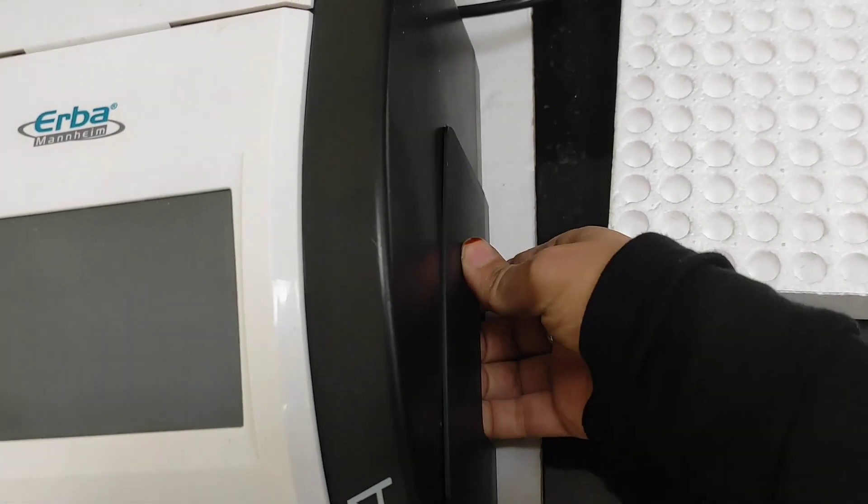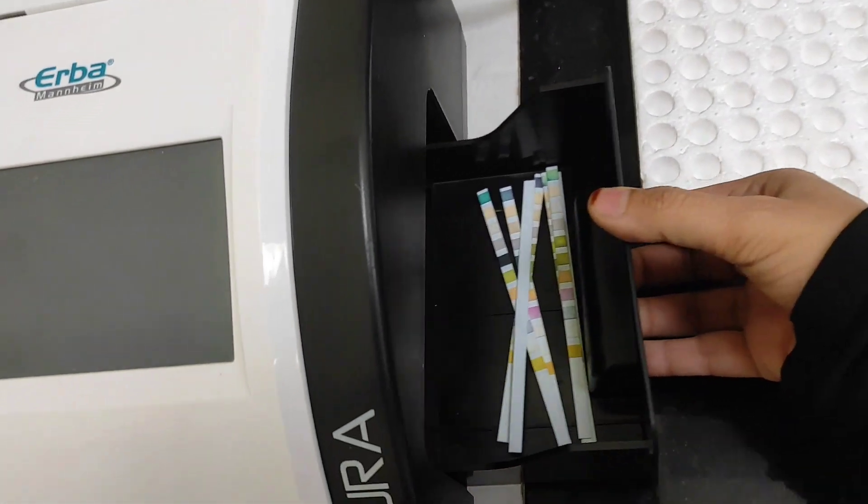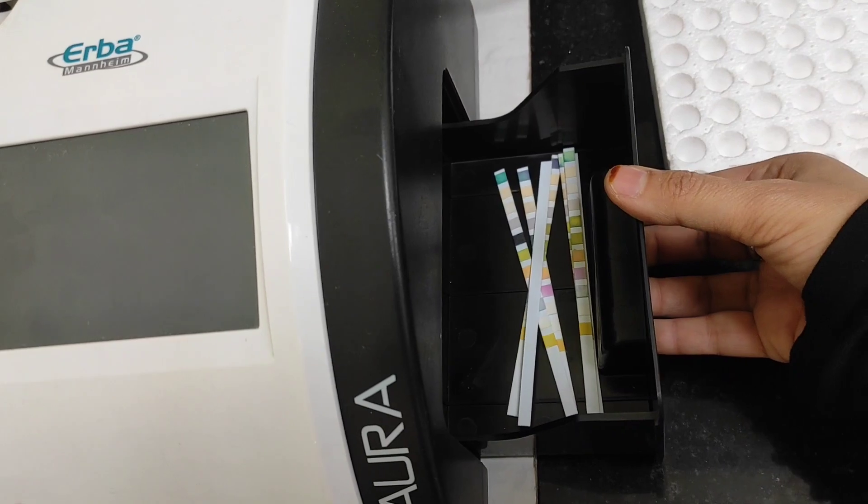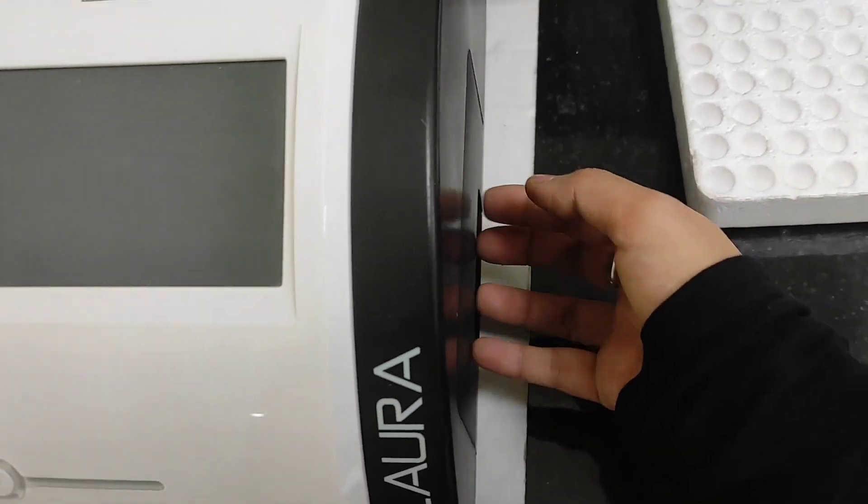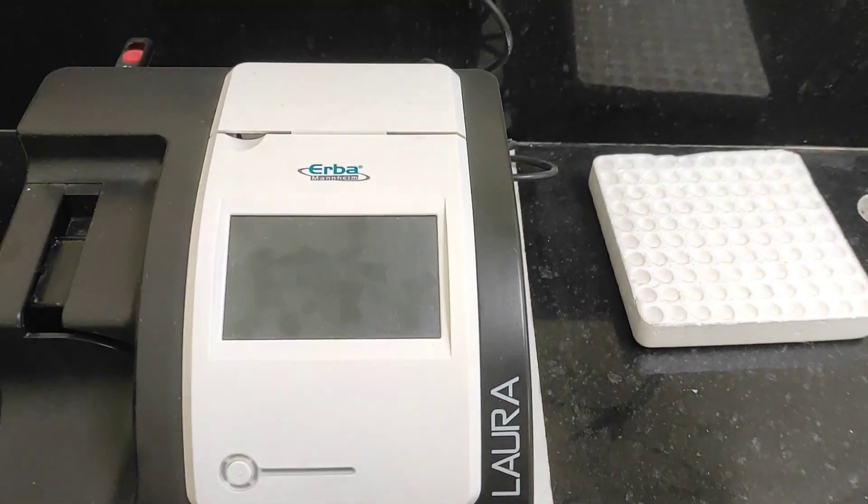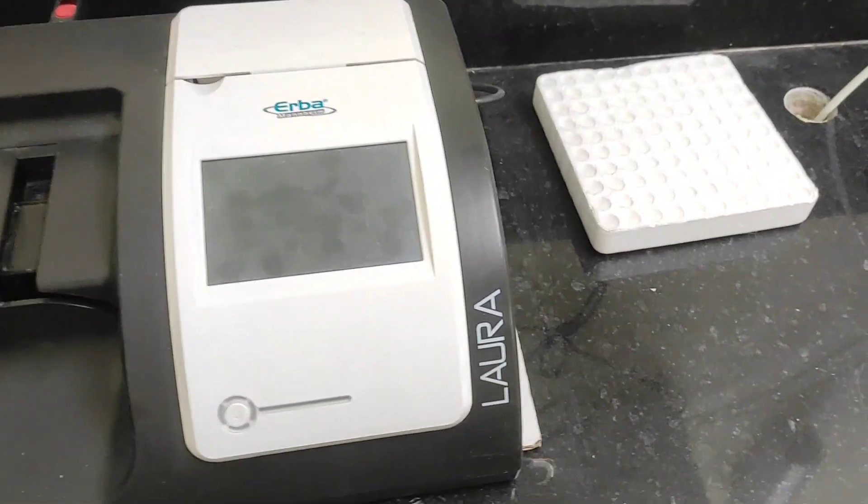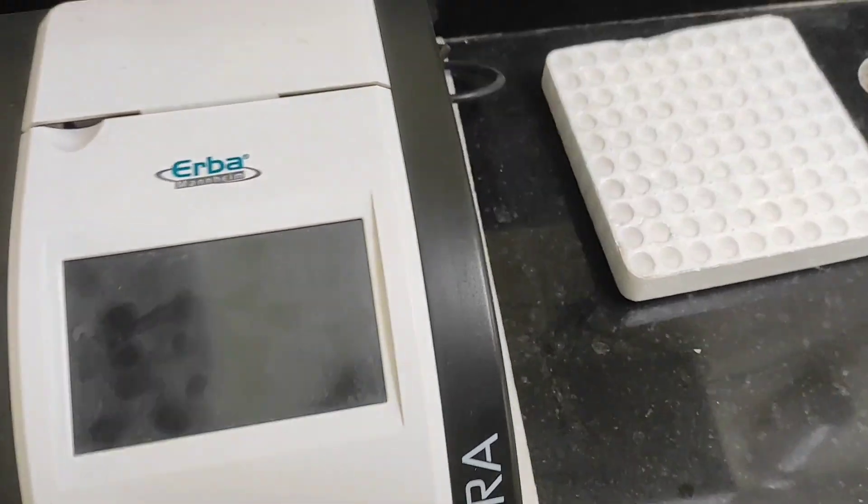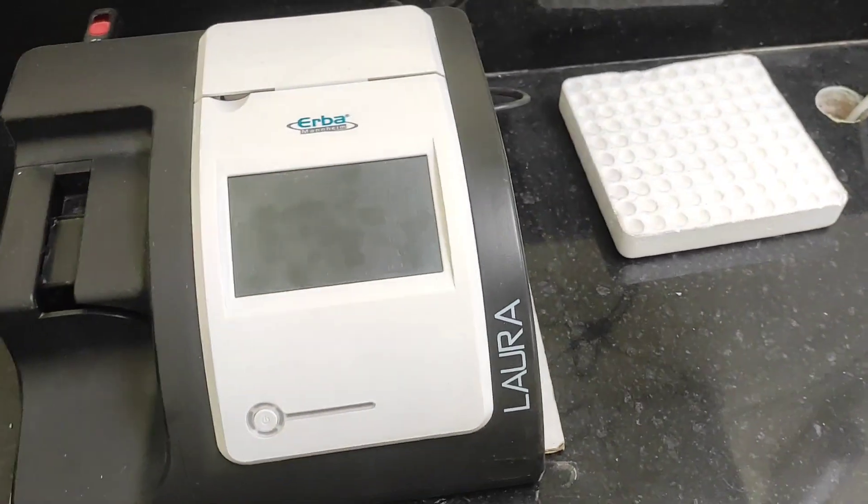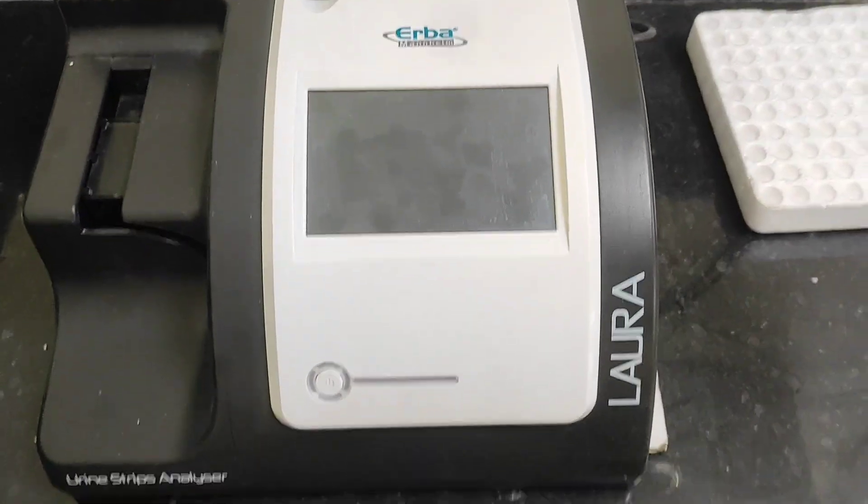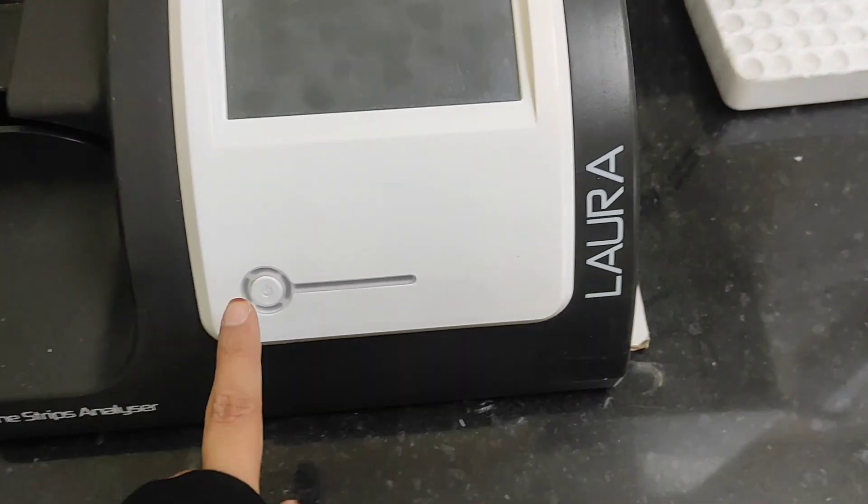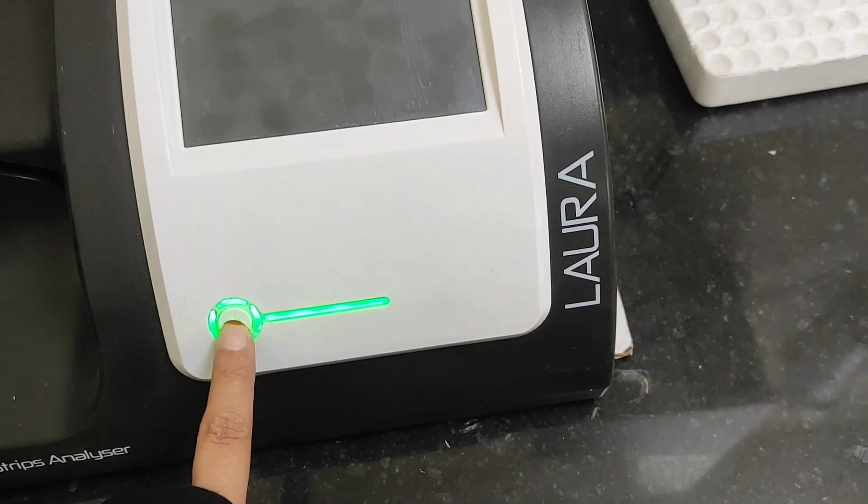So let me just start the analyzer. Starting the analyzer you have to long press the button and it will automatically connect the mass storage.